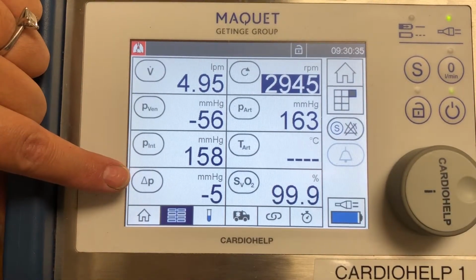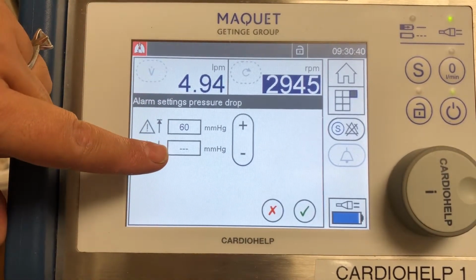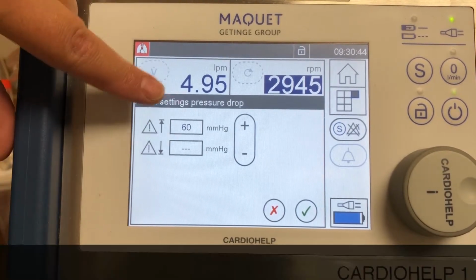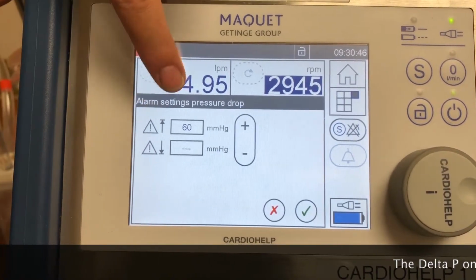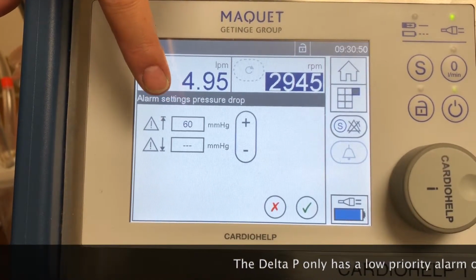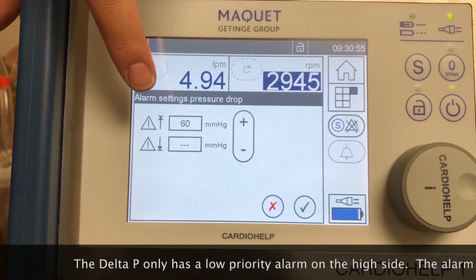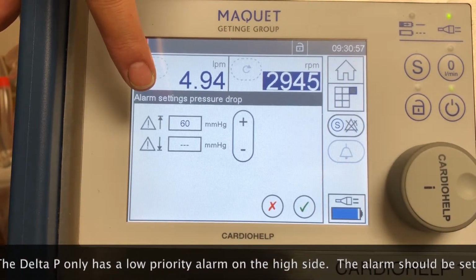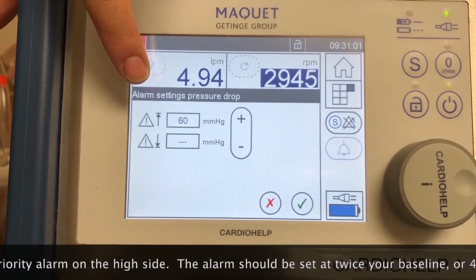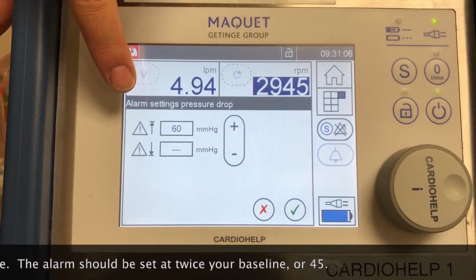You have your delta P. The delta P also has just the two ranges. The low range doesn't mean anything because we don't really care how low our delta P is. We only care when it starts going up, and that's the only value that I prefer to set up. We always say for oxygenator failure due to clots, you want that value to either double in a very short time or go over 40 or 45. So it's up to you if you want to set it just at 45 or be a little more strict and double your baseline value.